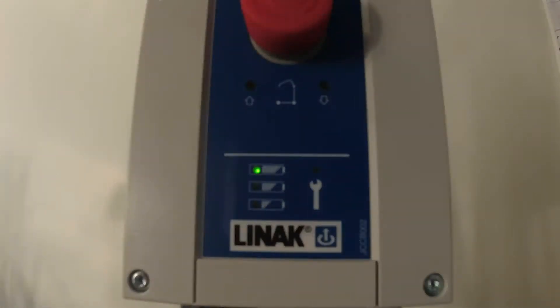You will also see a service banner which advises when the next service should be arranged. This counter can be reset and the service light will be unlit during that service.